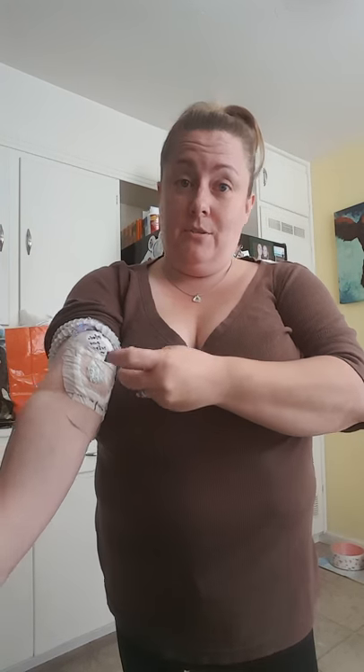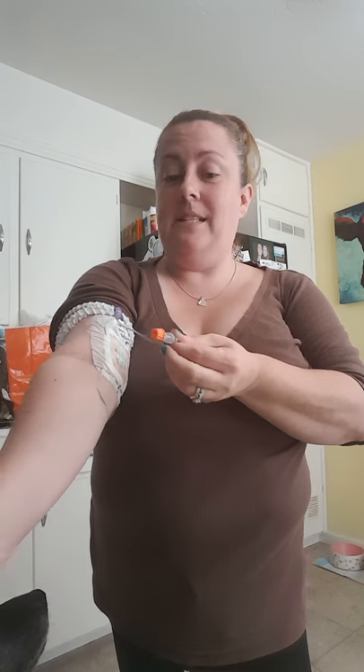That's why I look like this — I'm getting ready to get in the shower in a few minutes. I wanted to do a quick tutorial. It's super easy. You're going to clean all of this with alcohol; it's not going to be that big a deal.